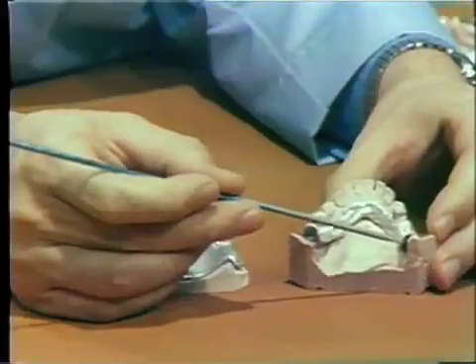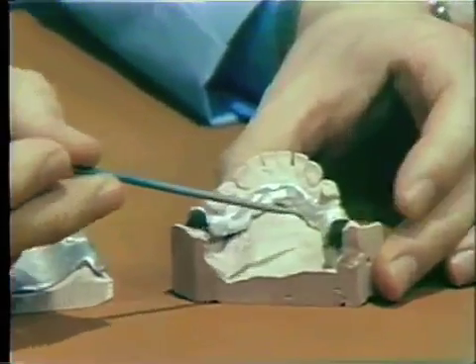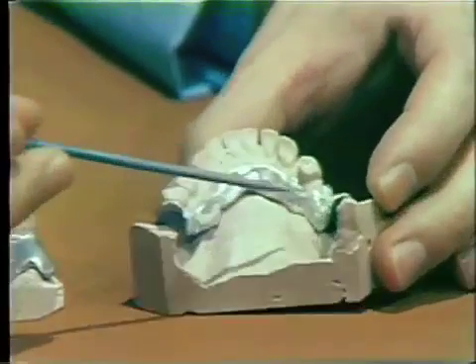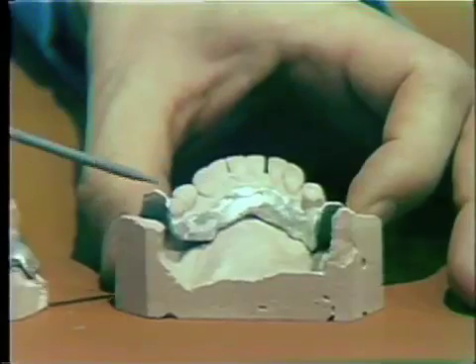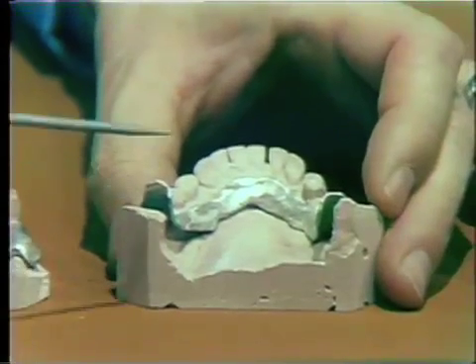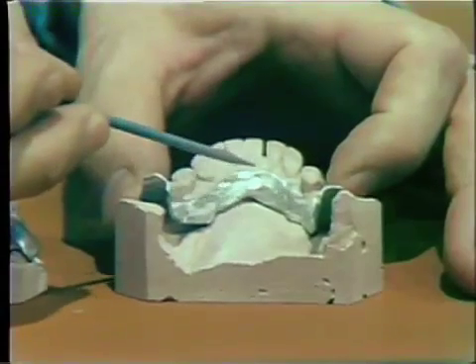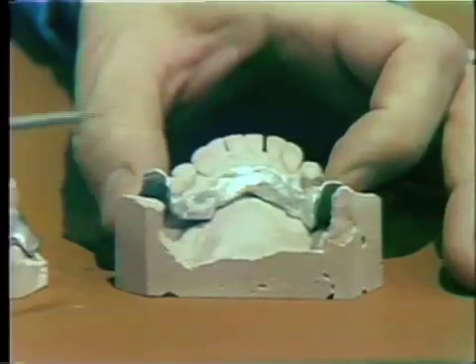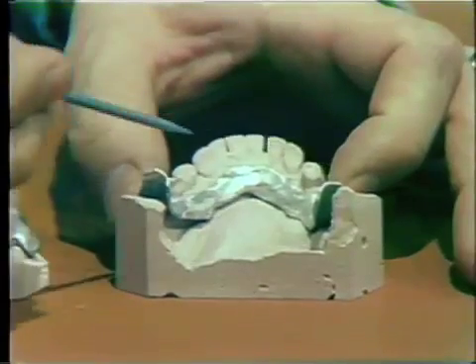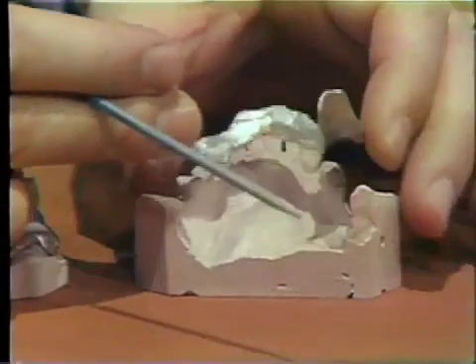The tray is usually fabricated out of aluminum — a special aluminum, Alcoa D216 alloy. The advantage of aluminum is that you can make a light and thin tray with this material. If you use a plastic such as a forme tray, in the lingual bar area you usually have to make the acrylic so thick to get enough strength that it displaces the tongue and other soft tissues. So for a small tray like this, aluminum is the preferred material.